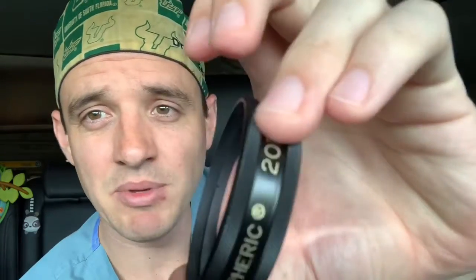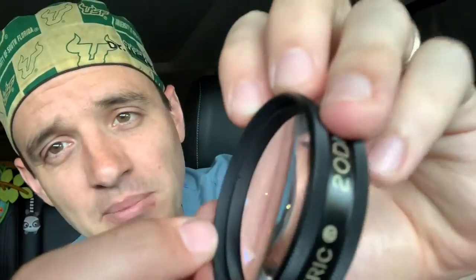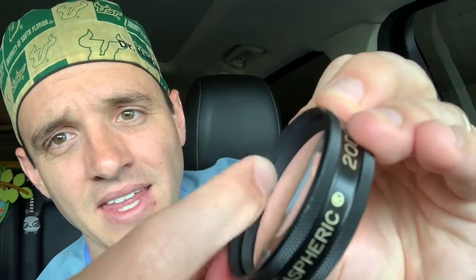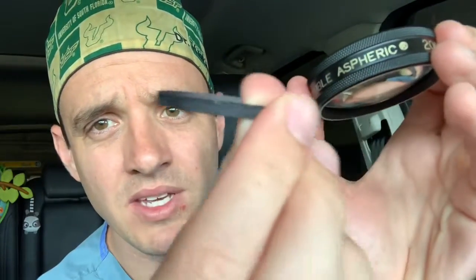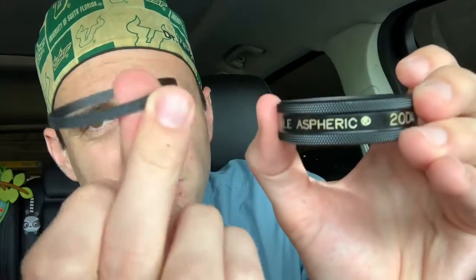This is another video for the first years out there. I want to orient you a little bit more to the lenses that we use every day in clinic. You may not be aware of this — we've got, this is a 20-diopter lens, but this goes for all lenses. There's a little ring on the inside that tightens it and secures it in place. If you just lefty-loosey unscrew this ring all the way past the threads, it just pops right out. There's that little ring. The little notch is always facing up — sort of gives you something where you can dig in, catch it with the fingernail and loosen it initially. And then the lens has a little notch that keeps it from falling out this way. But if you turn it over, they'll come right out.